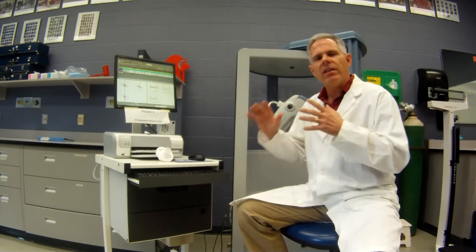We need to coach our patients very clearly on how to do this test. It's a little bit more difficult than some of the other ones we've talked about and coaching is really critical for this one. Each manufacturer has a little bit of a different way that doing the plethysmography occurs, so you need to adapt your coaching to how your machines work, but they're all basically the same. I'm going to demonstrate how we're going to do it with this particular device.